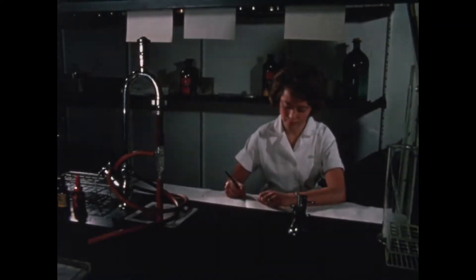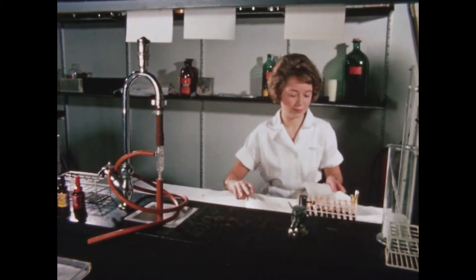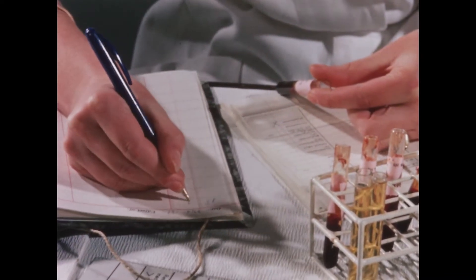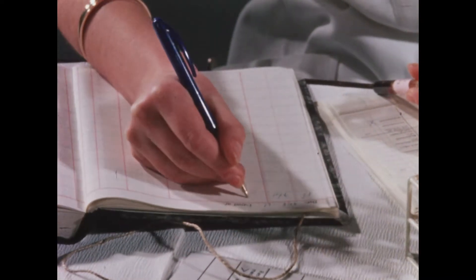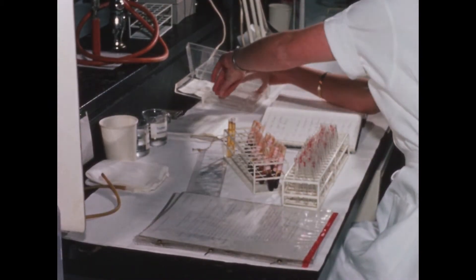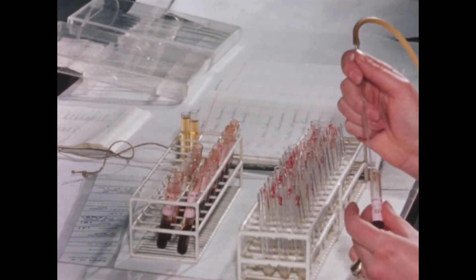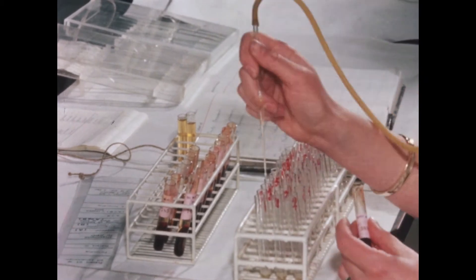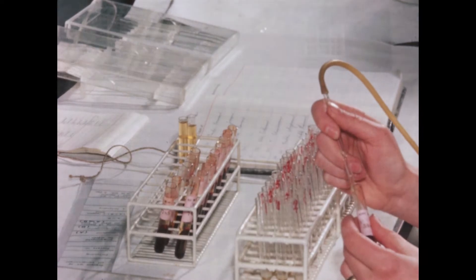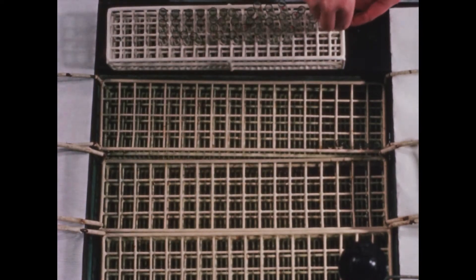Recent analytical technical advances have made it possible to determine a large number of enzymes in the serum, and this advantage is being utilized extensively for diagnostic purposes. This applies in particular to enzymes of an intracellular localization which catalyze the metabolic processes of the cells. In cases of cellular degeneration caused, for instance, by traumatic injury to organs, arterial thrombosis or the like, these enzymes are liberated and pass into the blood.